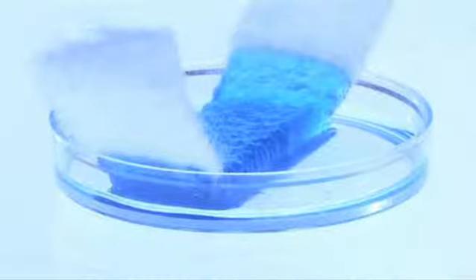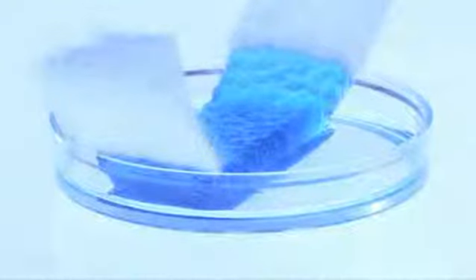However, when Aquacel dressing comes into contact with the fluid, the fluid is locked in as the fibers gel. There is no movement of the fluid beyond the boundaries of the petri dish.